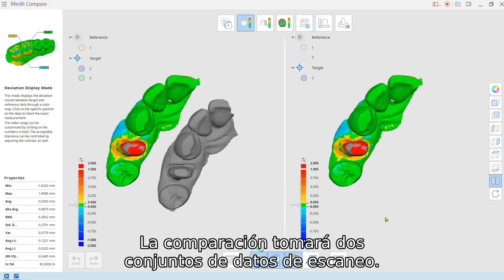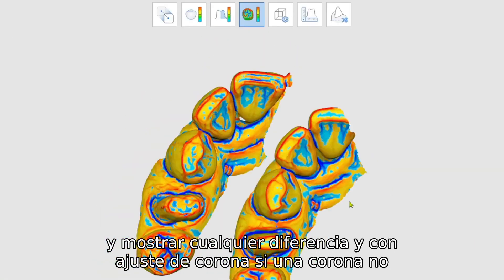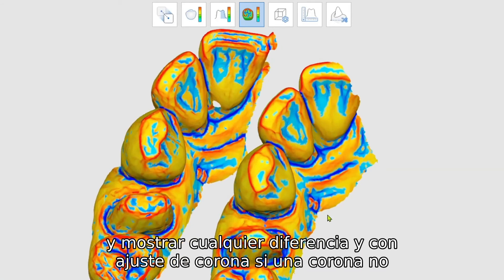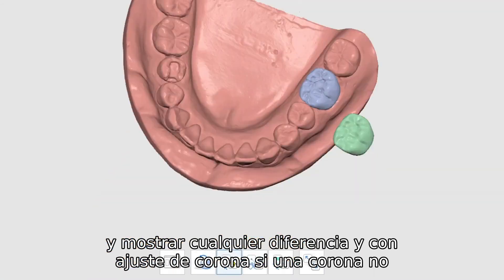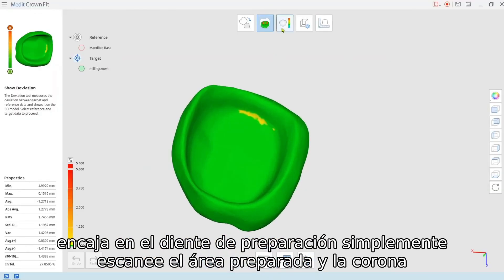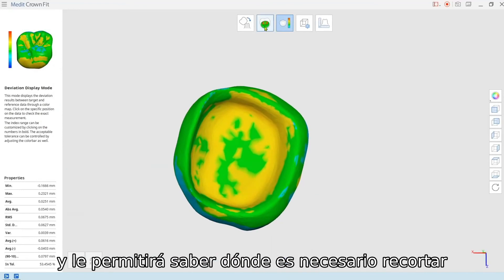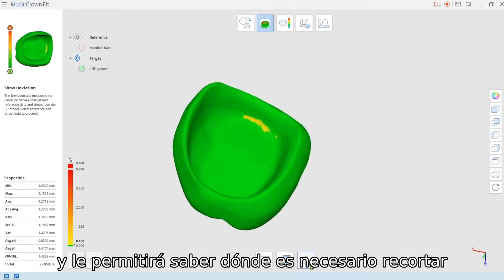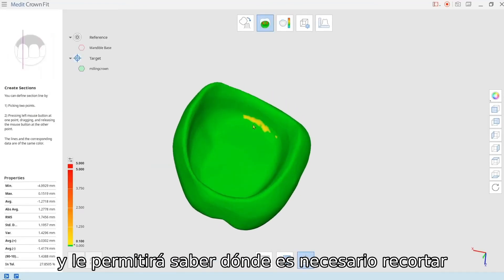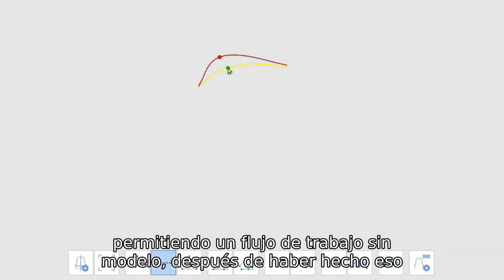Compare will take two sets of scan data and display any differences. And with CrownFit, if a crown doesn't fit on the prepped tooth, just scan the prepped area and the crown, and it will let you know where trimming is potentially needed — allowing for a model-less workflow.